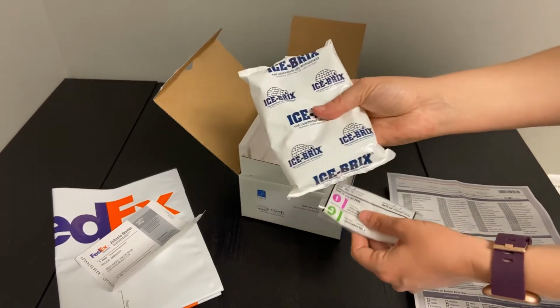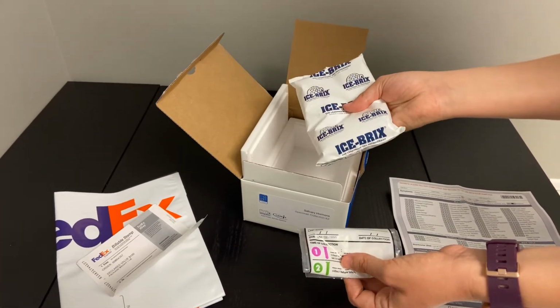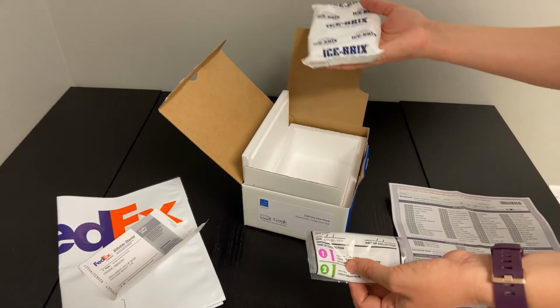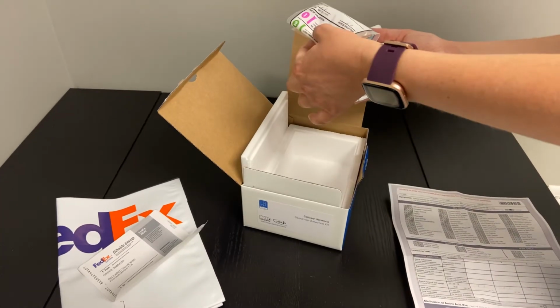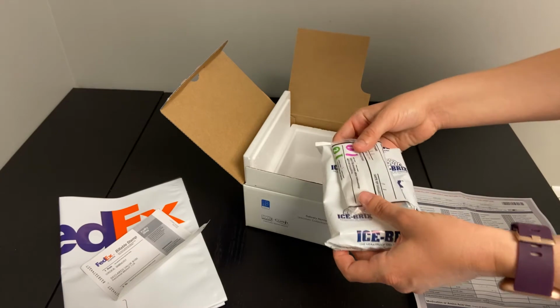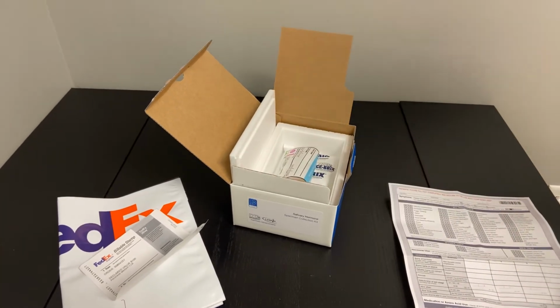This ice pack here, either when you first get the kit or before you decide that you want to collect the saliva, put it into the freezer so that it's nice and frozen, so that the day you do your collection, everything's put into the freezer. The following day, once everything is frozen solid, you'll take them both out. You'll place them into this box just like so, into the styrofoam there.